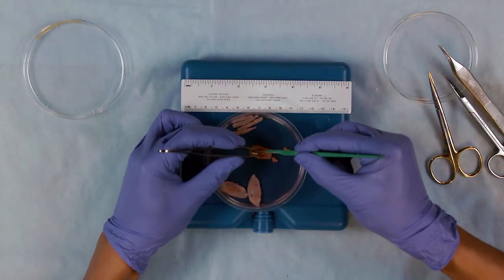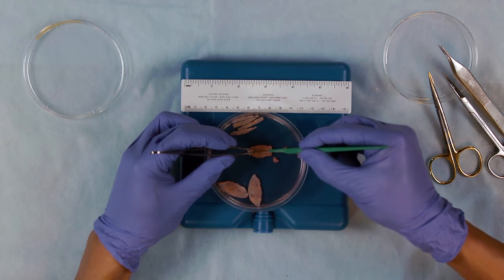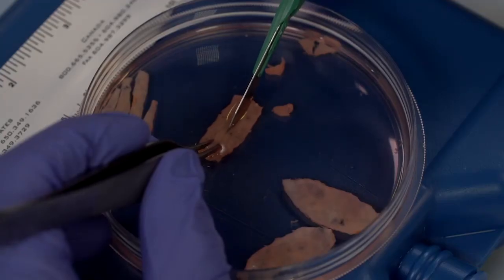Cut the flattened and thinned out cortical tissue into strips. This can be done in two ways, either with straight scissors or a scalpel.